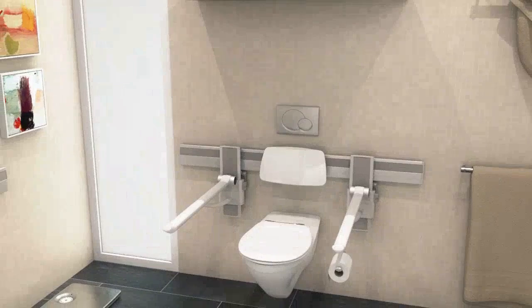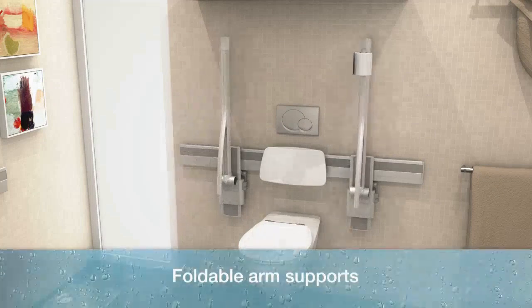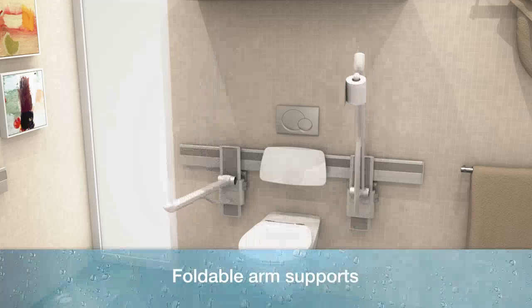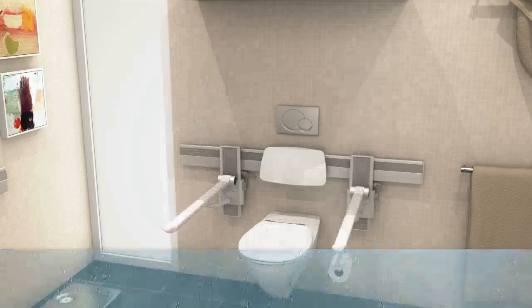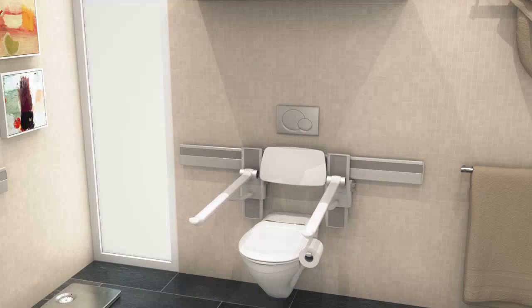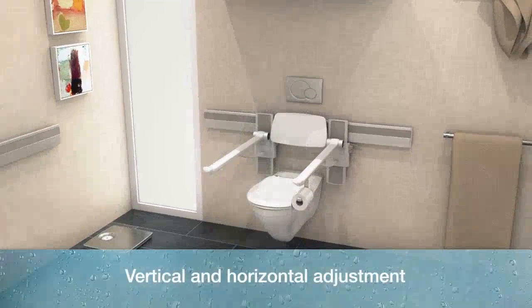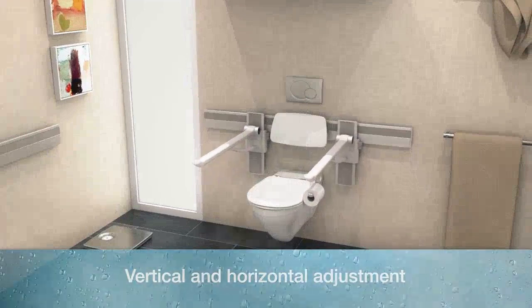It's a good place to sit when the toilet seat is down. The foldable support arms on both sides of the toilet always provide the user with a stable place to sit. This is regardless of the user's height and breadth, because the support arm's height and width can both be adjusted to suit the individual exactly.